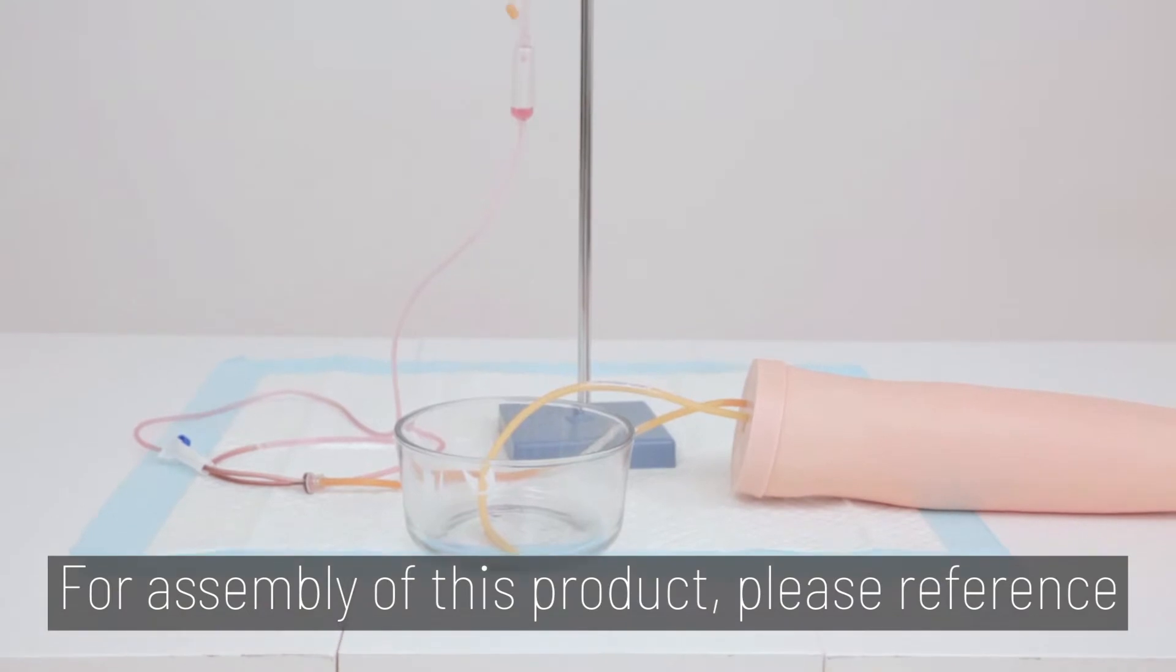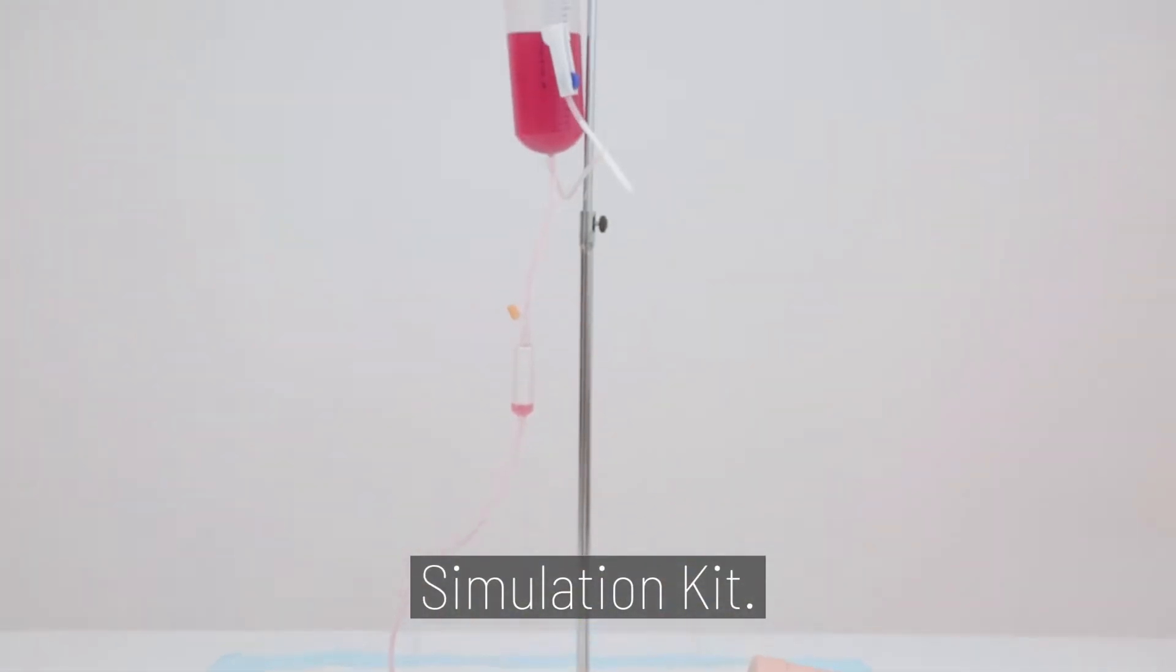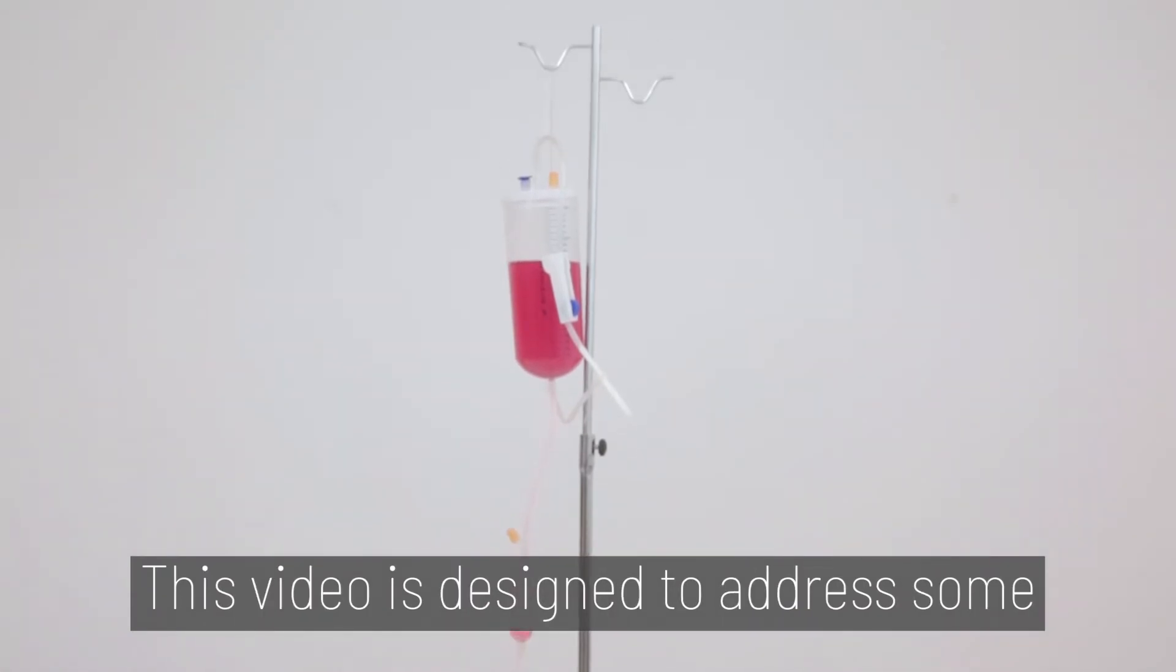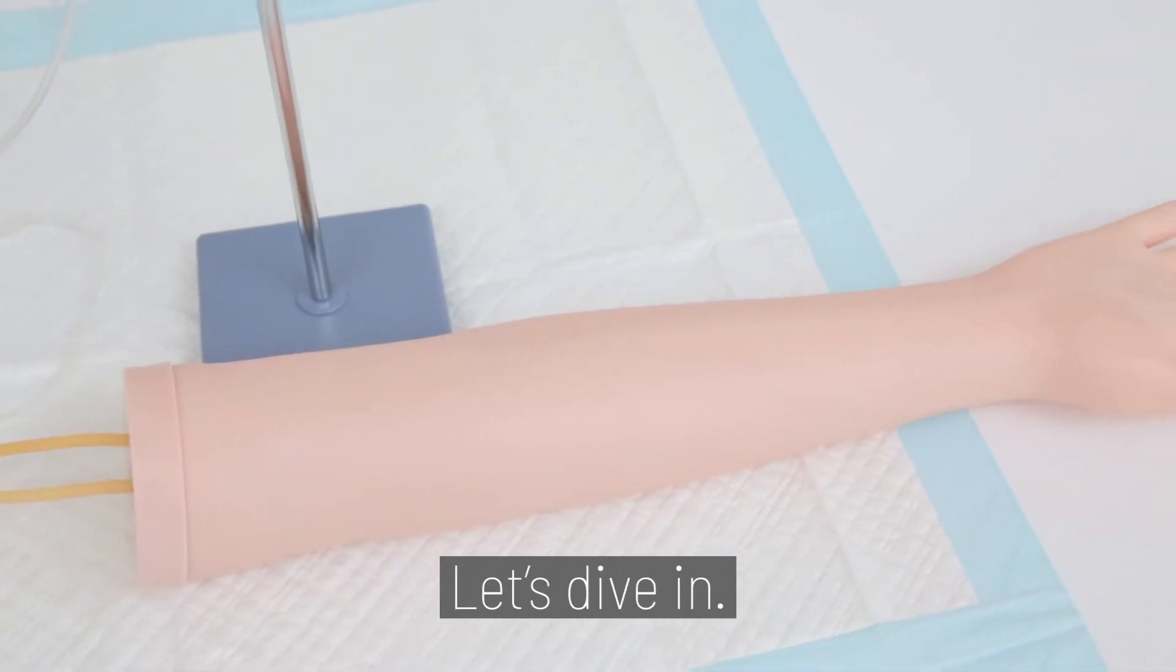For assembly of this product, please reference our assembly video for the Veni Puncture Simulation Kit. The link is at the top of this video. This video is designed to address some of the common problems encountered when using this kit. Let's dive in.